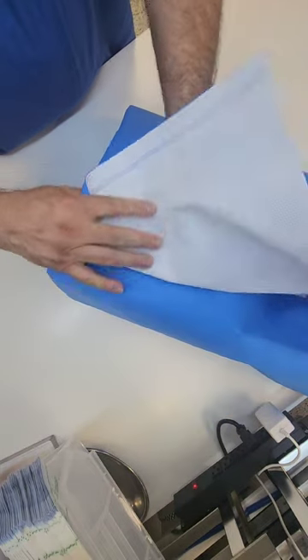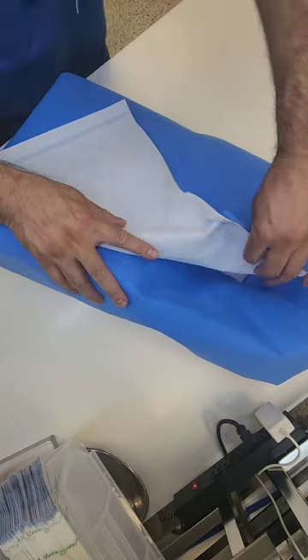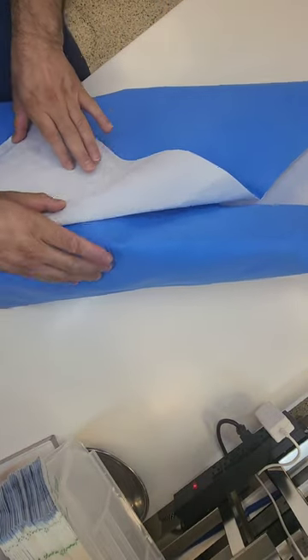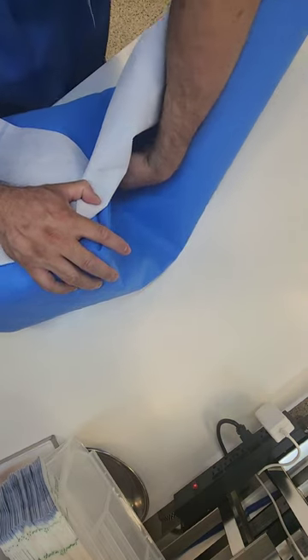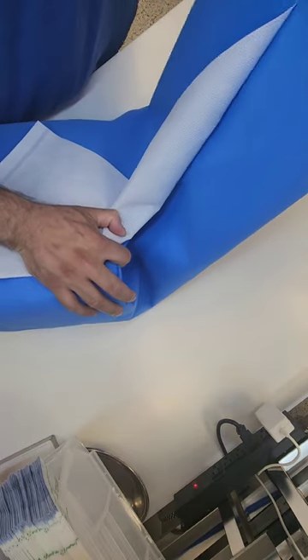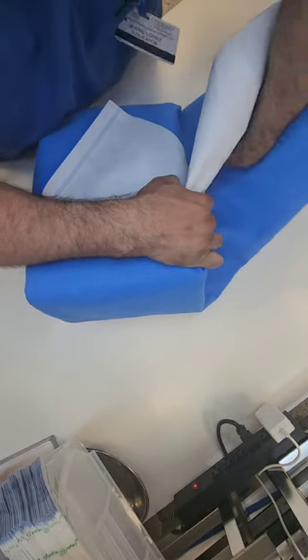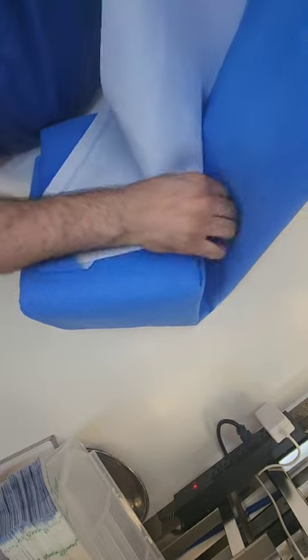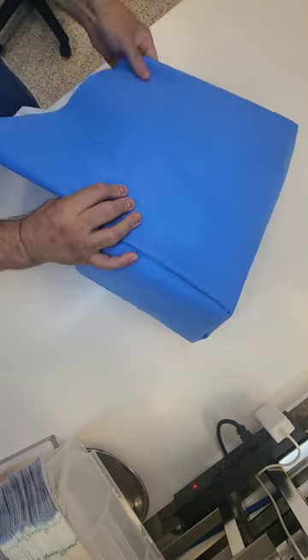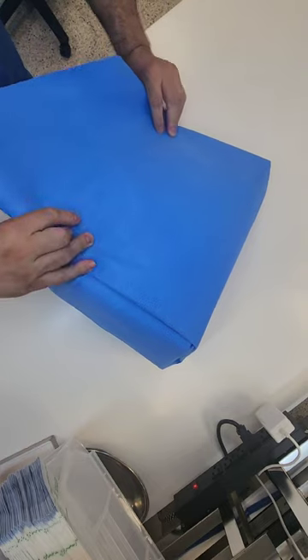The hardest part here is getting the last fold. This took me a minute to figure out — I don't know why this was so difficult for me. I had seen a traveler do this, or I seen this on a Facebook post. The trick here is that you have to fold one flap actually back the way I'm showing here. And then you're going to do a really extreme tuck on the high side of the triangle, and it'll give you complete coverage. You want to make sure you have an extreme tuck so that you don't have a lot of overhang. Here's how it should look on the final wrap — if you tuck that one side back, you get complete coverage of the top of the triangle.